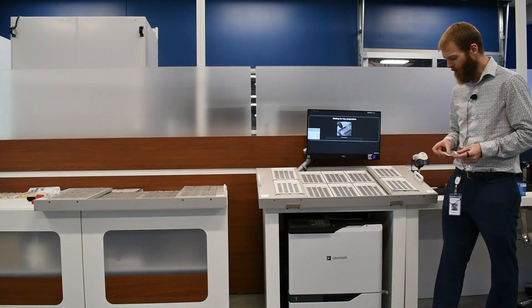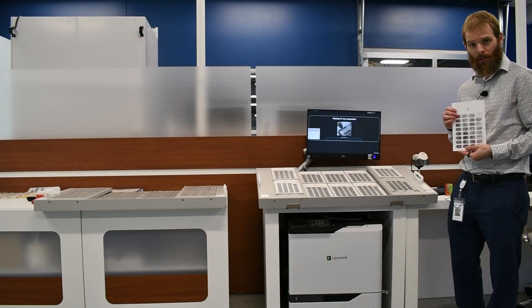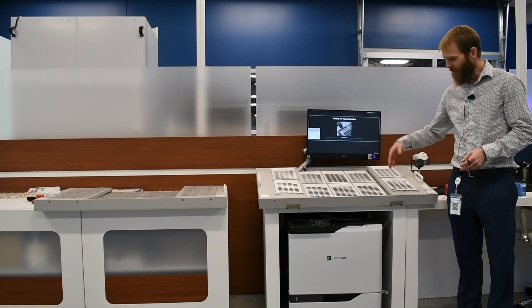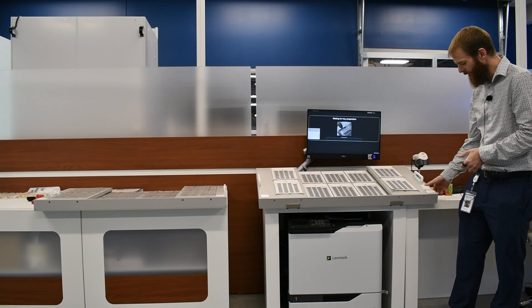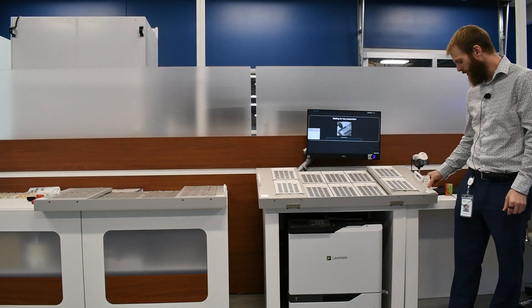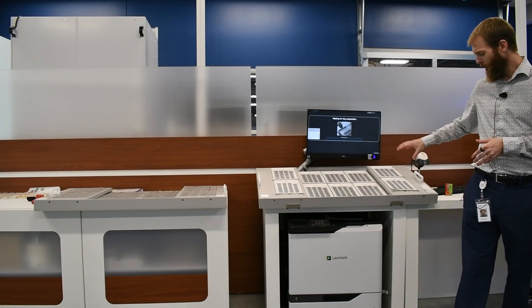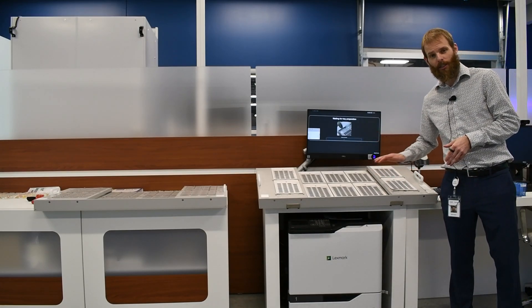These tray labels will be assigned to the tray that is filled with the blister cards. The blister cards are placed in the tray unit empty by the technician. They then select the job they want to fill, and that is when it prints out the actual tray labels. Those tray labels are applied to the tray so that your staff and everybody in the workflow streams know what cards are associated to that tray.